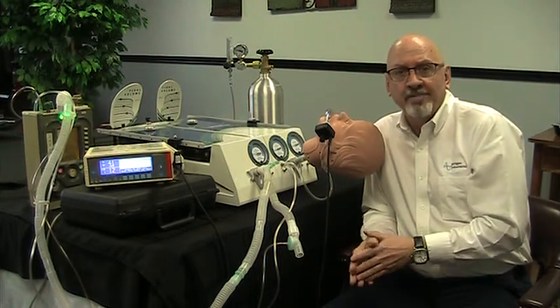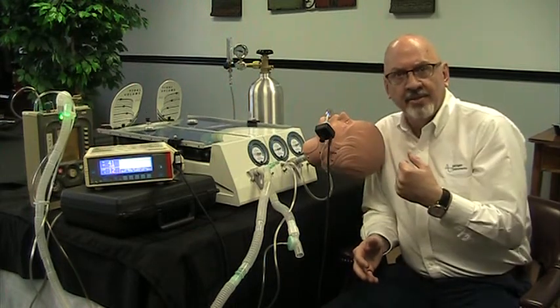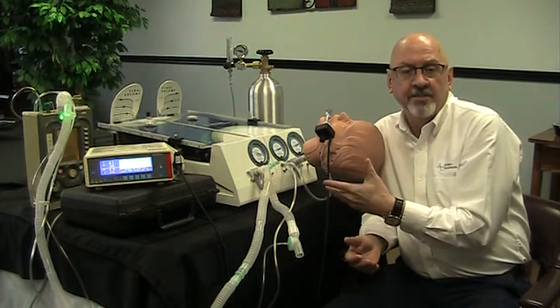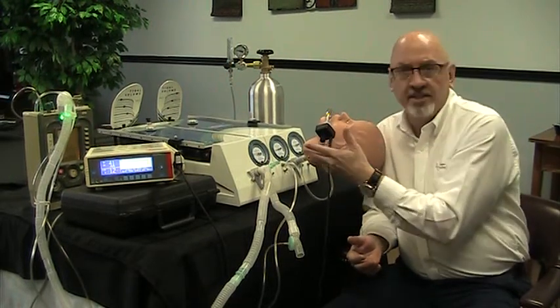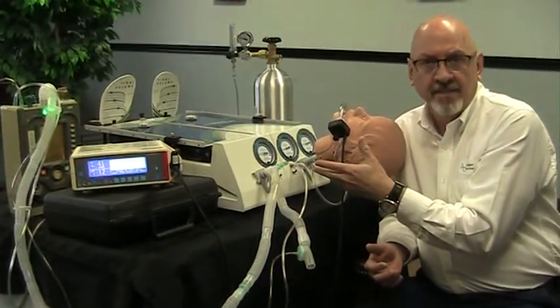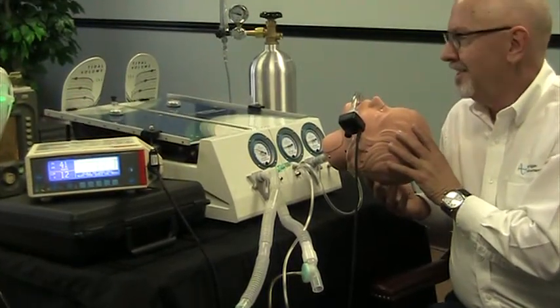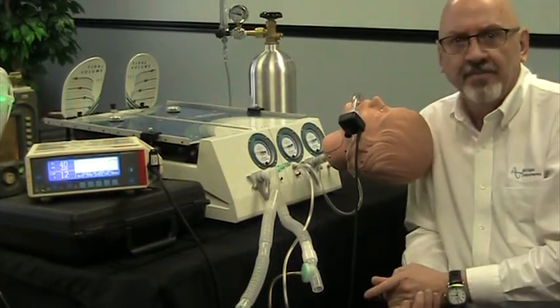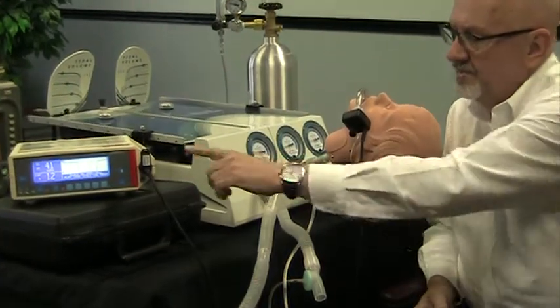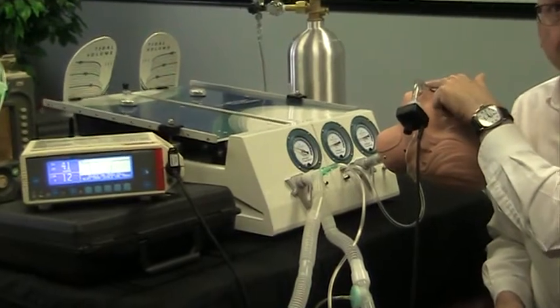Occasionally, we're asked questions about introducing a gas into the test lung and then measuring the return of that gas with exhalation. Today we've set up a simulation where we are using the dual adult TTL to simulate spontaneous breathing. We have our head simulation module on this unit, and we have connected a carbon dioxide monitor and sensor here at the endotracheal tube on this mannequin head.